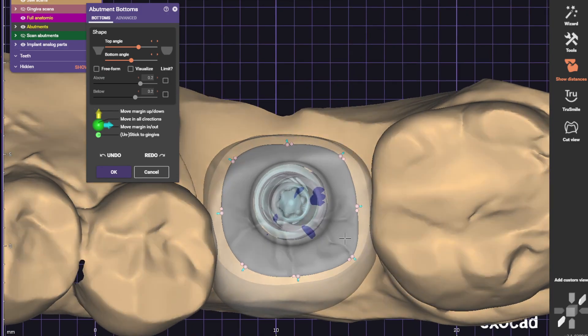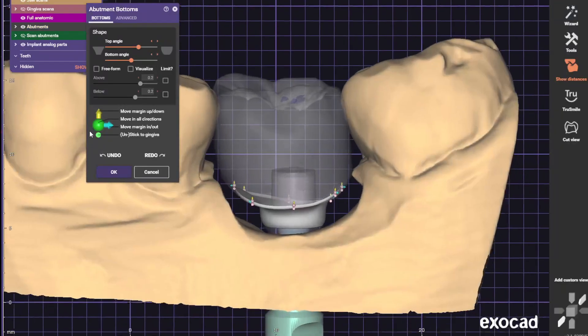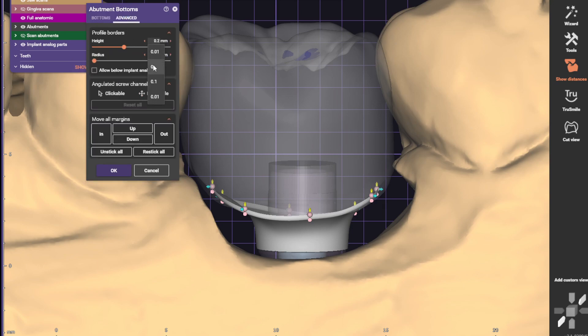Alright, we want to cut everything as level and straight as possible. Change this to concave. Go ahead and change this profile margin to zero.